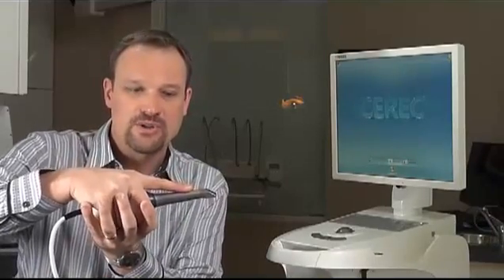Hold the camera in a pen grip like this with the palm of your hand just on the gray portion. I've also been known to use it in an overhand area like this. Sometimes you can get a little bit more leverage as you're holding the electronics.